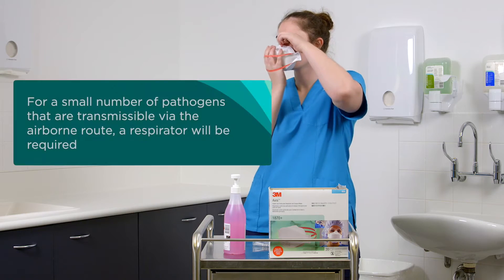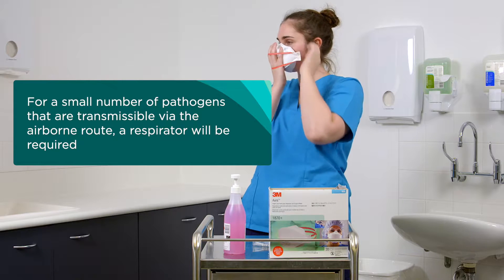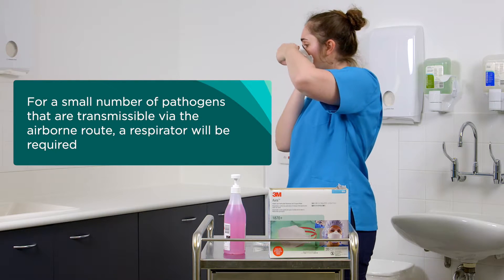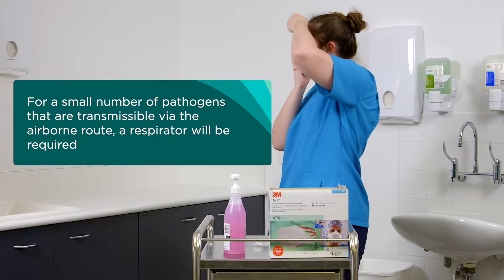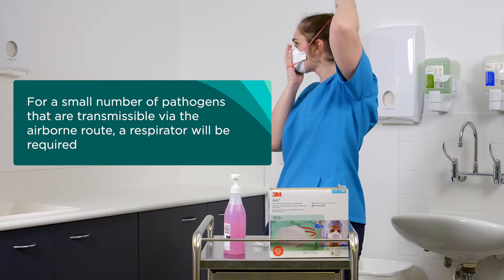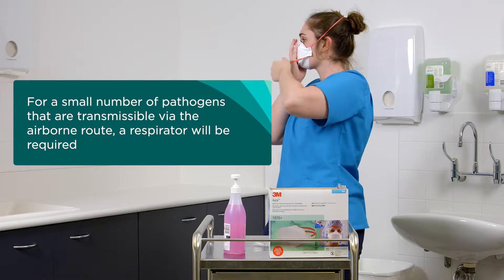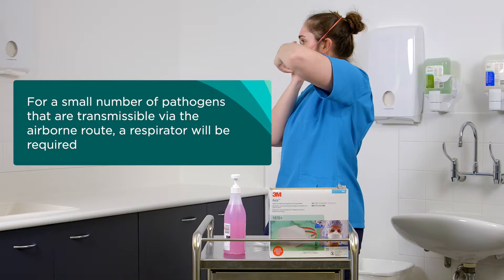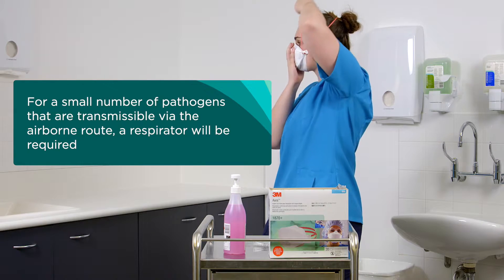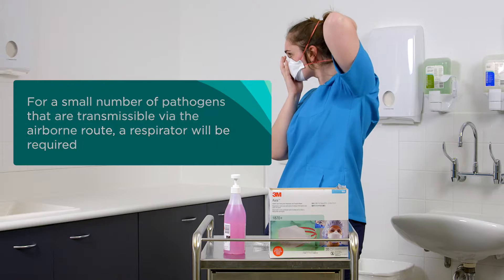For a small number of pathogens that are transmissible via the airborne route, such as tuberculosis, measles or chicken pox, or where AGPs involving infectious respiratory fluids are being undertaken on a patient such as COVID-19, a respirator will be required.